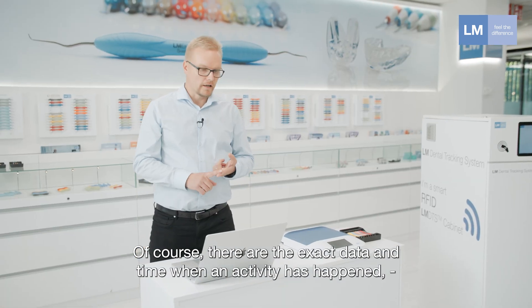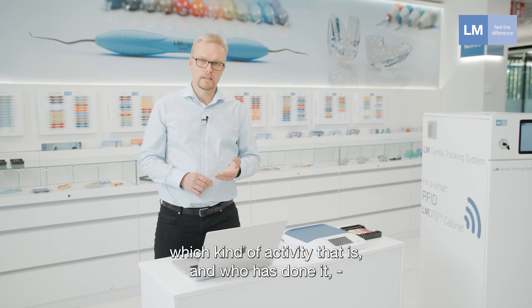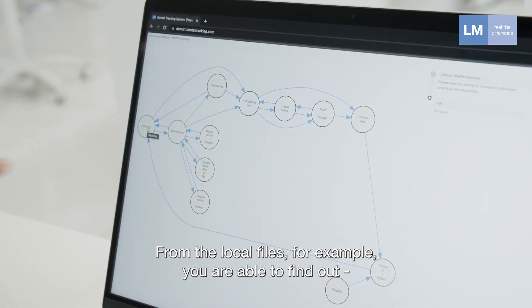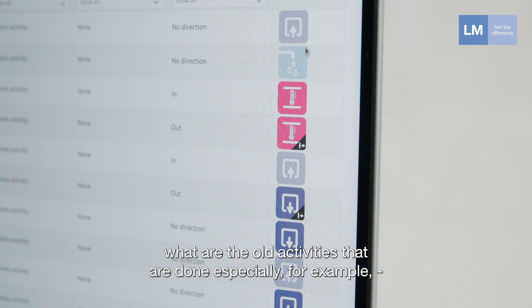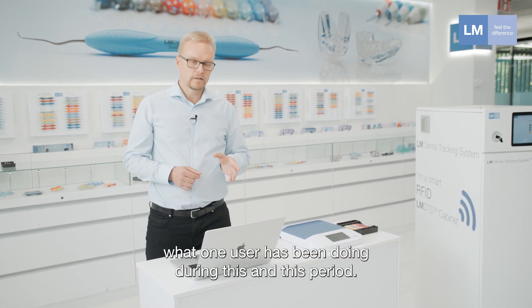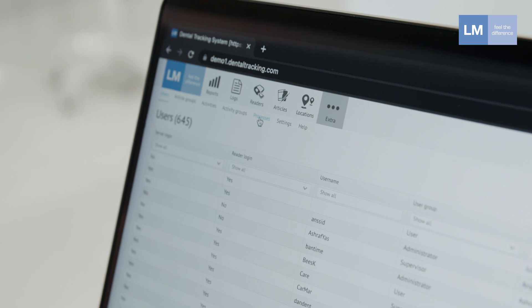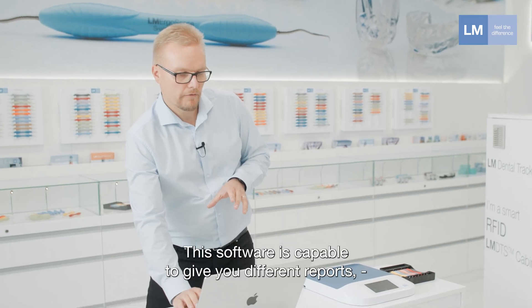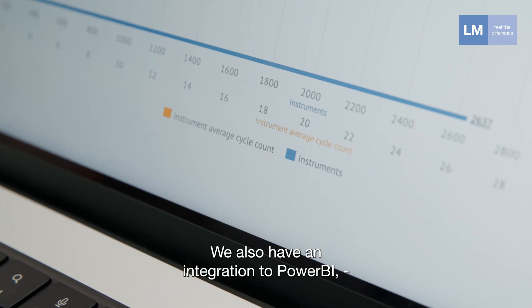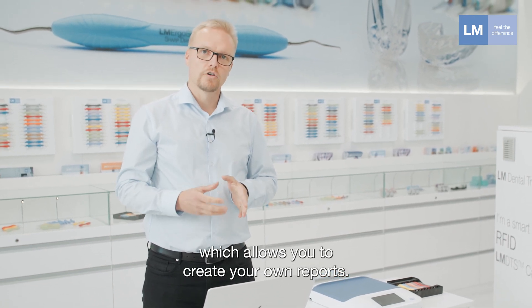The log files include the exact date and time of each activity, the type of activity, who performed it, and for which items. From the log files you can find all past activities for a single specific instrument, or see what a specific user has been doing during a given period. The software can generate different reports created by our IT team, and we also have integration with Power BI, so you can create your own custom reports.